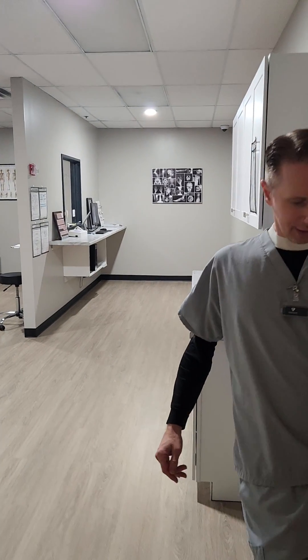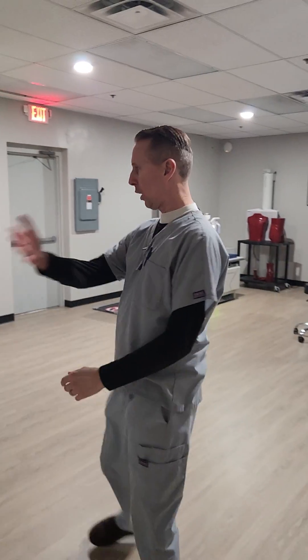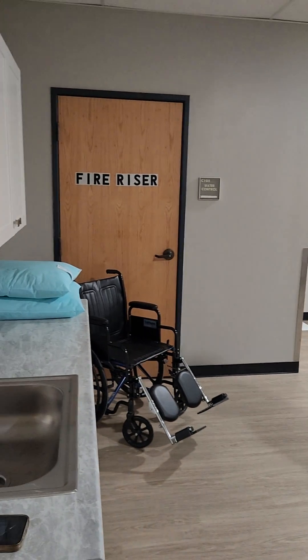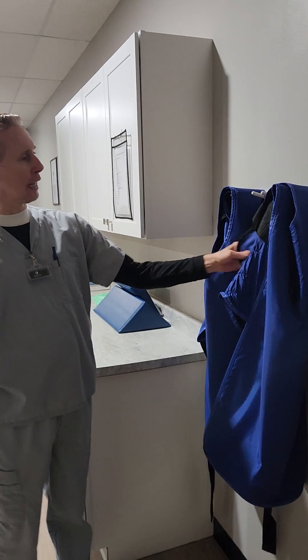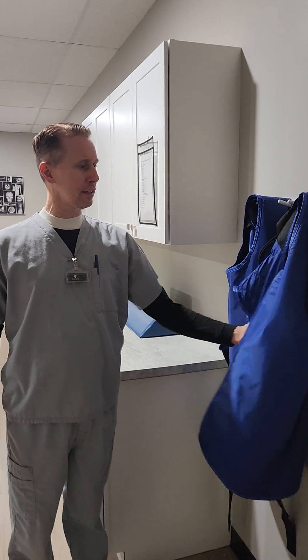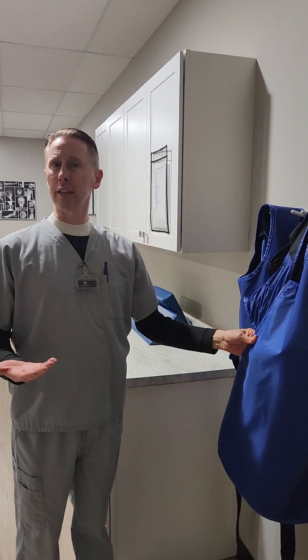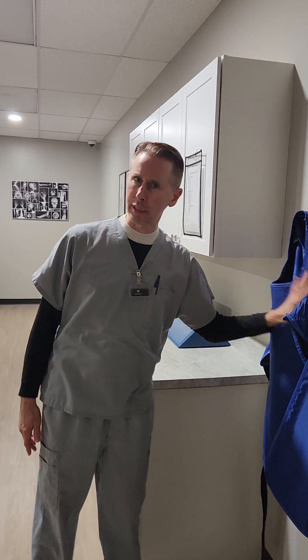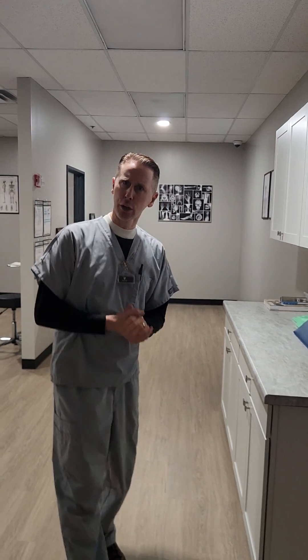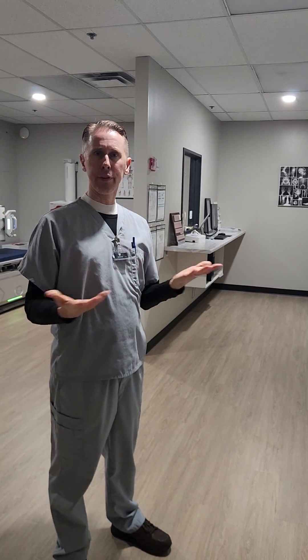Let me prop open this door here. As you can see, we have a wash station, wheelchair, pillows, and over here we have our lead aprons and lead shielding. We wear these when we do certain procedures, such as fluoroscopy, live imaging, and several other procedures. We wear that to protect ourselves from any chance of being irradiated by ionizing radiation.